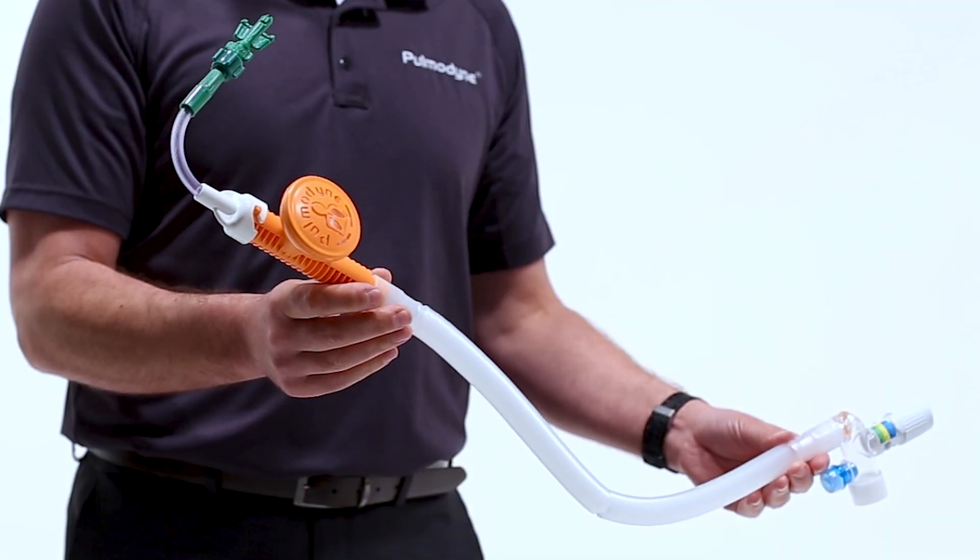From the connection we have a clear tube that leads to the O2 Max generator. This tube is feeding 15 liters per minute of flow from the oxygen source at 50 psi from the high pressure port into the generator. The generator then entrains or pulls in a further 125 liters per minute of ambient air to give us 140 liters per minute of flow. More importantly, that air being entrained is also being filtered by a bacterial and viral filter that is also catching potential allergens. This is important as most of the patients we are treating with CPAP already have compromised lung damage, so adding contaminants is not ideal. The O2 Max is a closed system and provides clean filtered CPAP pressures.